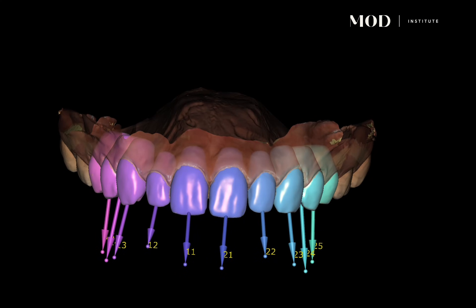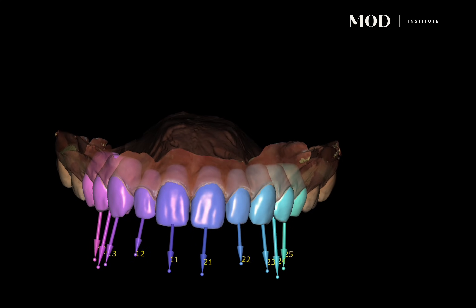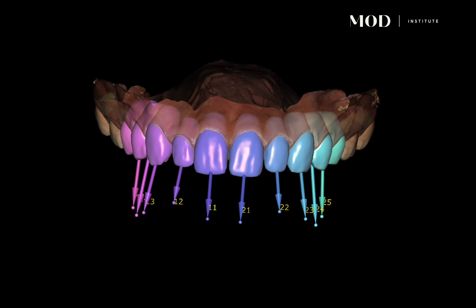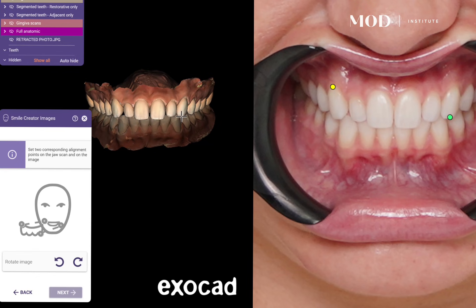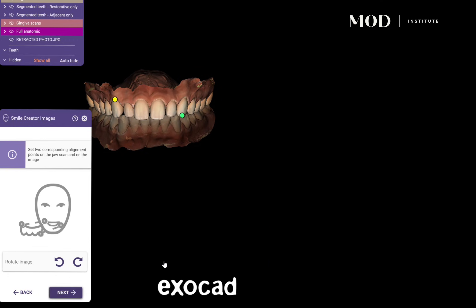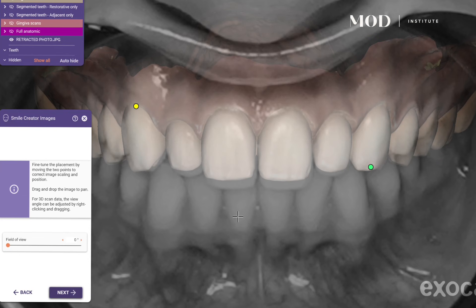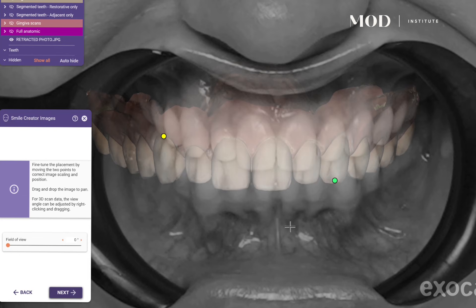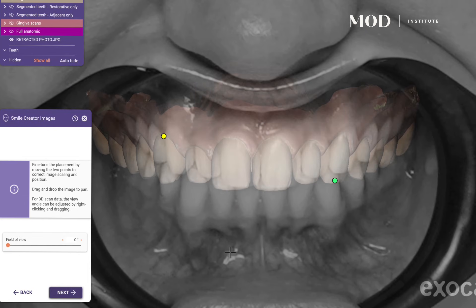It's virtually extracting each tooth while creating a fully editable library tooth, so now each of these teeth are complete wax structures we can further manipulate in any way Exocad allows, including chain mode operations. I'm going to run this through the smile creator where I'll merge the patient's intraoral scan to the photograph.